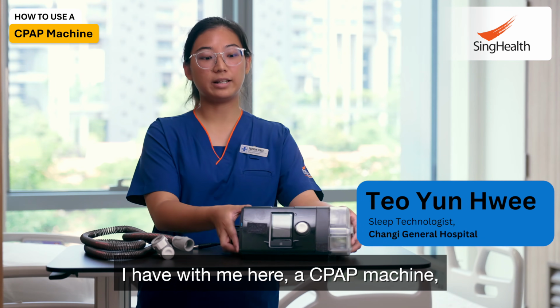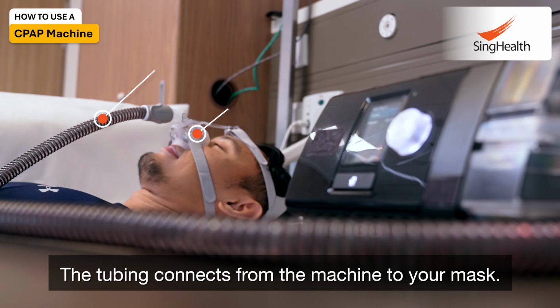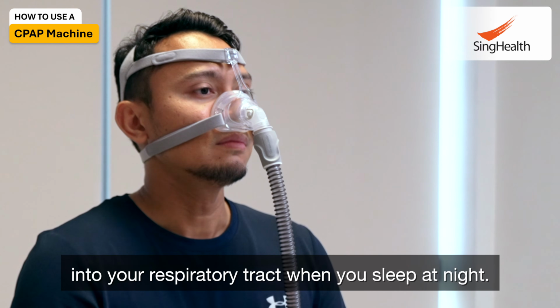I have with me here a CPAP machine as well as the tubing. The tubing connects from the machine to your mask. The CPAP machine pumps the surrounding air into your respiratory tract when you sleep at night.